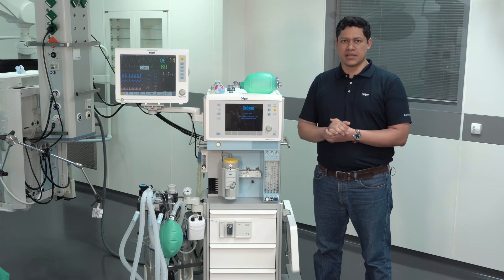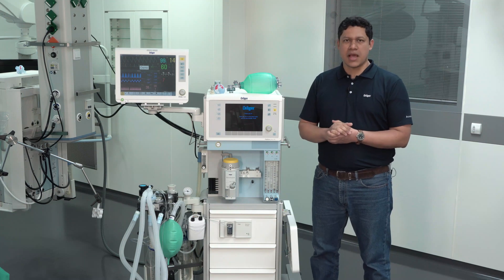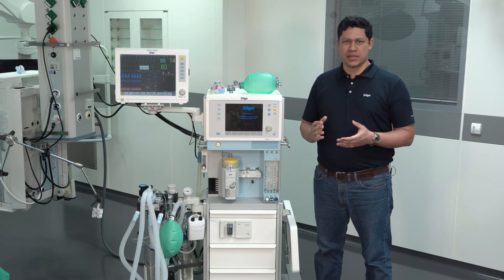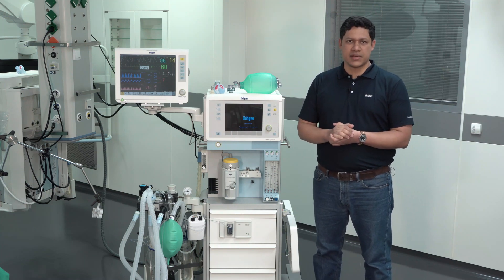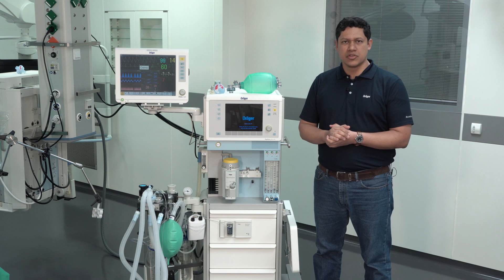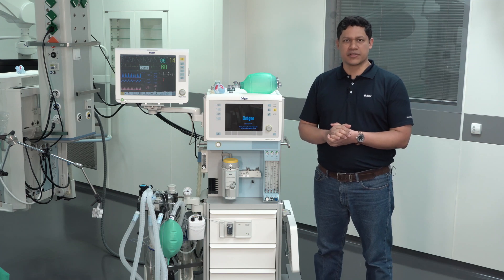For non-invasive ventilation, ICU mechanical ventilators or non-invasive ventilators should be preferred.